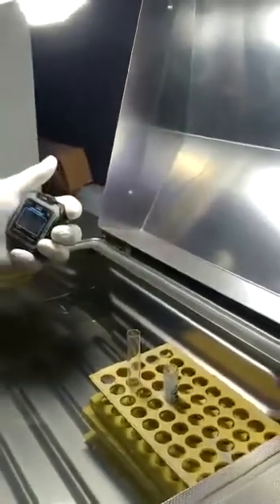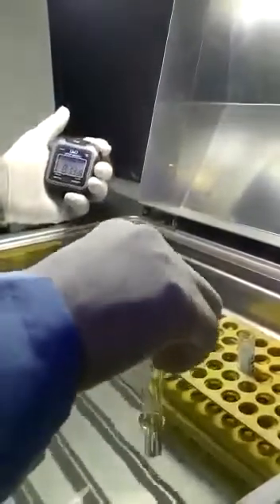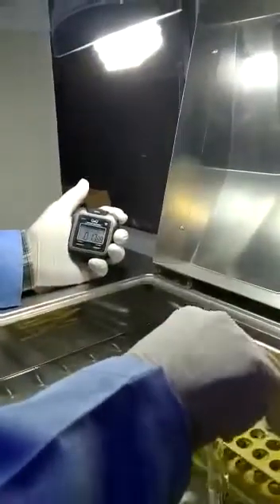And we will wait for 15 to 20 seconds. When the reaction is over, then we start checking the clot. Here he is waiting. When the 15 to 20 seconds have passed, he starts checking the clot formation. The normal value of aPTT is 33 seconds. Let's see what is here. The first point where we see the clot will be the aPTT time.